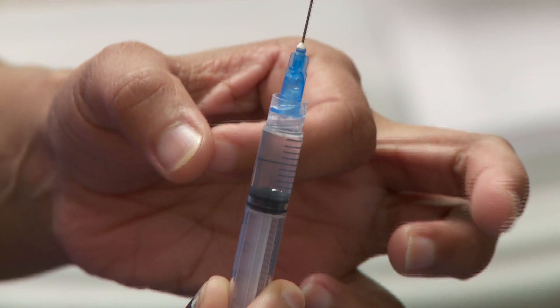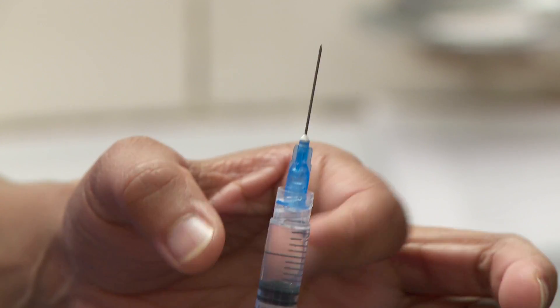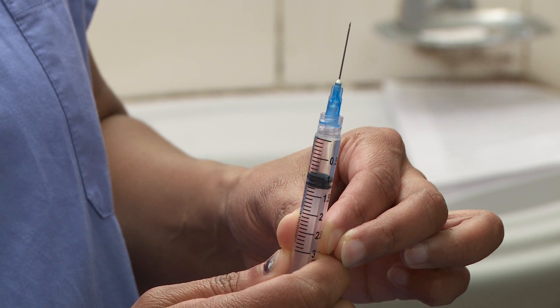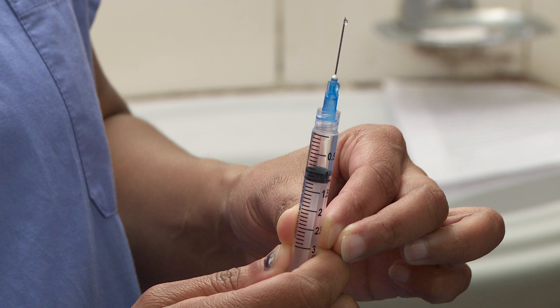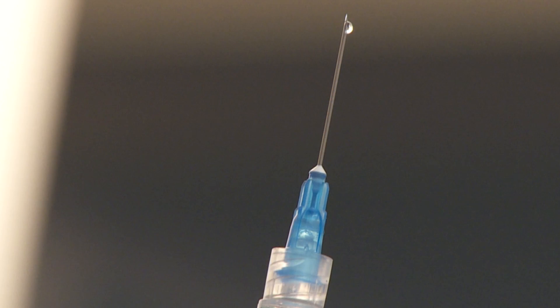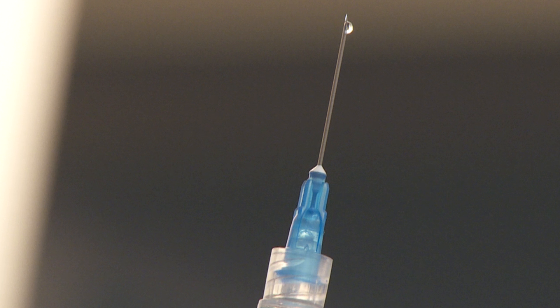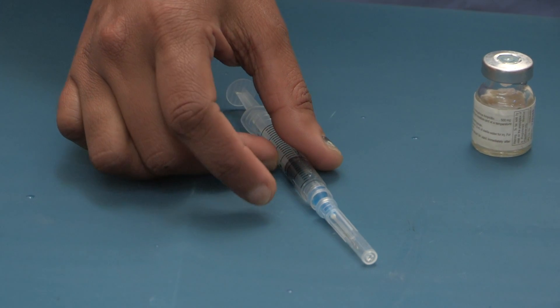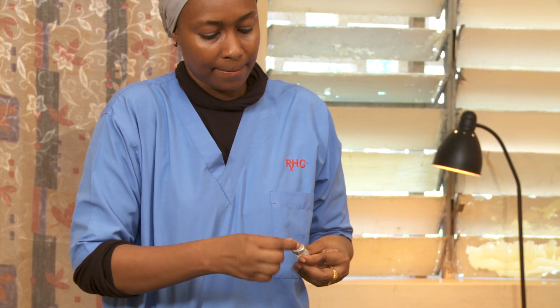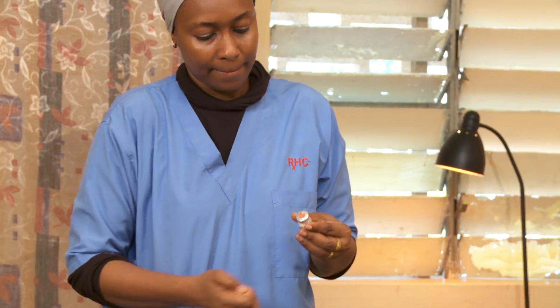Tap the syringe until all of the air bubbles rise to the top. Push the plunger in just a little until a drop appears — now you know the needle itself is filled with fluid. Cap the needle with the one-handed method. Next, we'll prepare gentamicin.